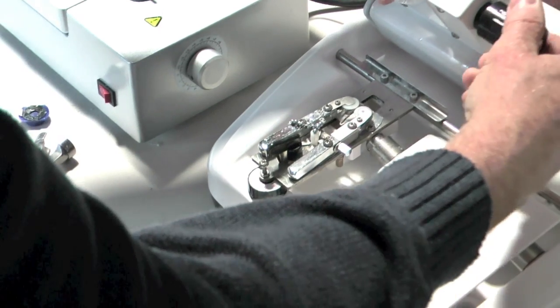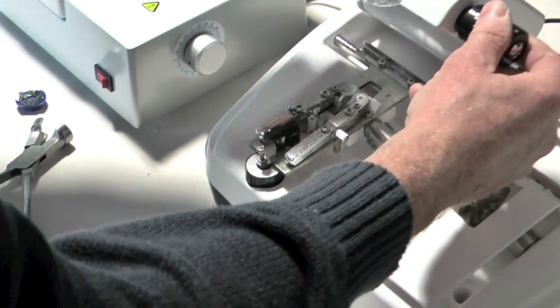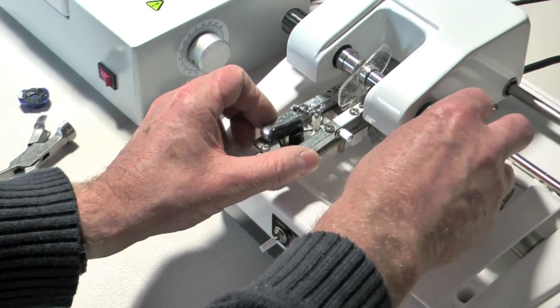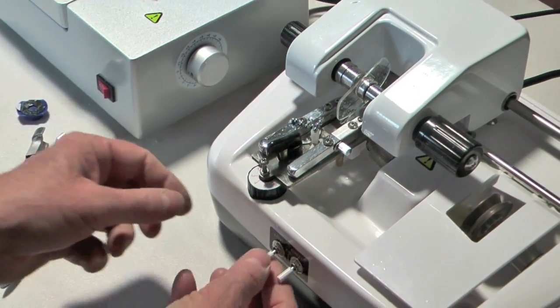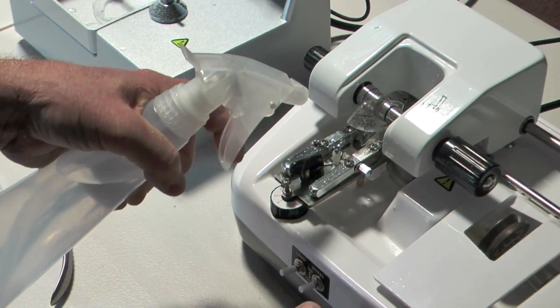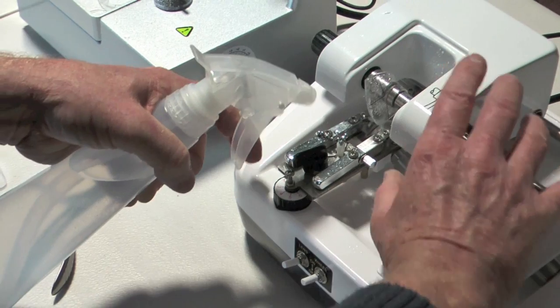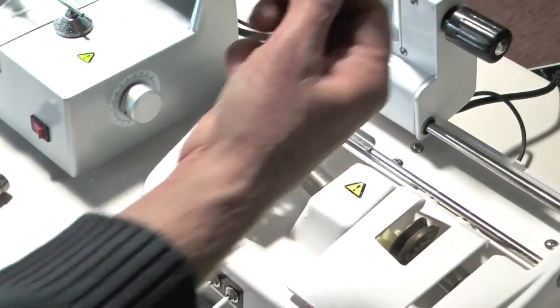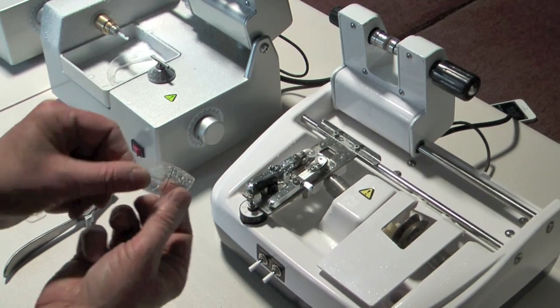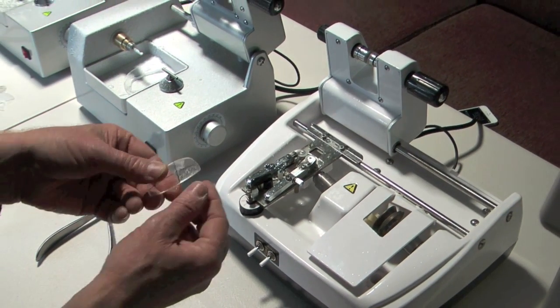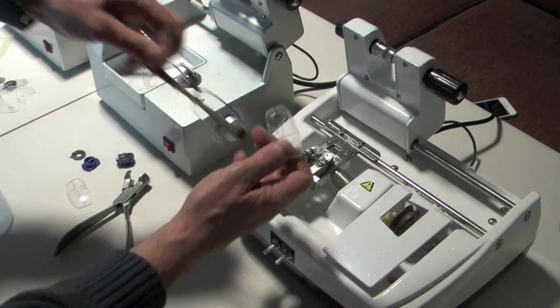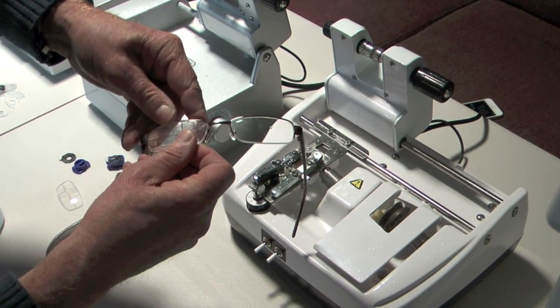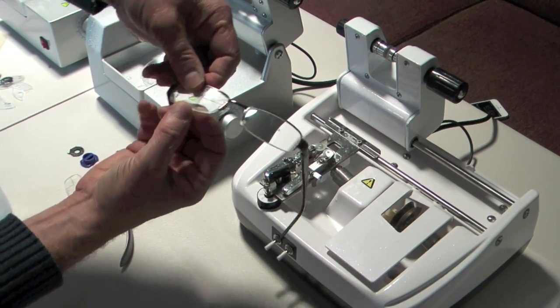Now I'm just going to... It's actually put the groove a little bit too far to the left. But we're going to try it anyway. That's fine. I think there was a part of the lens where it just hadn't cut it properly. So we've now got a lens which has got the groove in. And that hopefully will fit nicely into the frame. And it does.